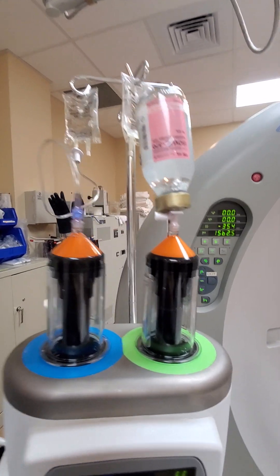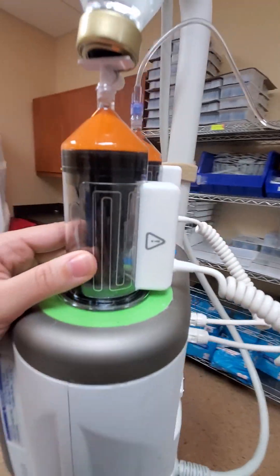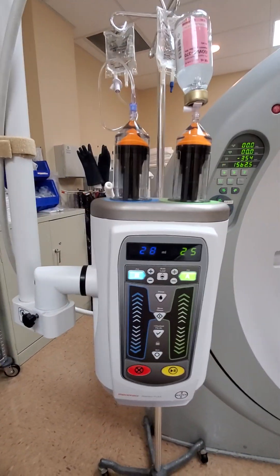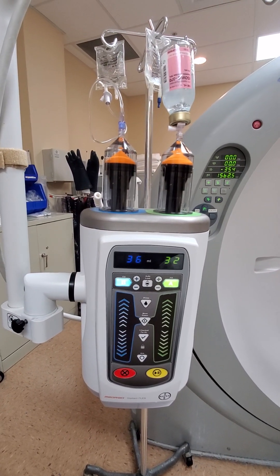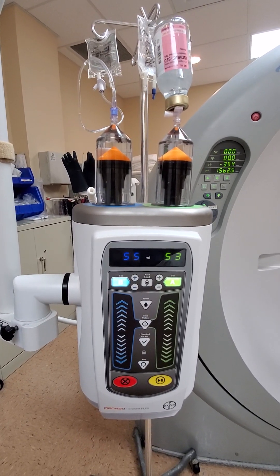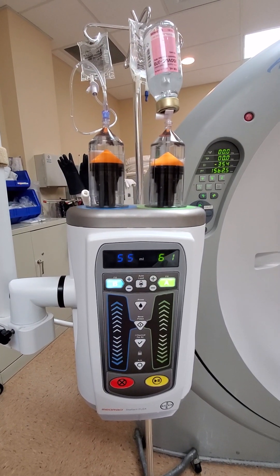So here it is. I also have the heaters attached right over here, and it will also make a beep when it's done.